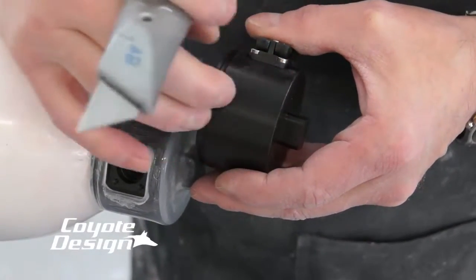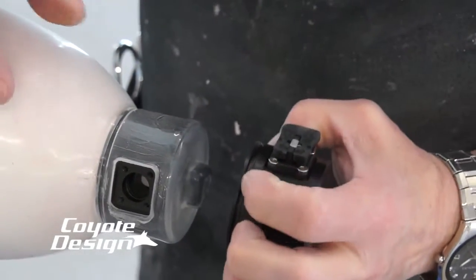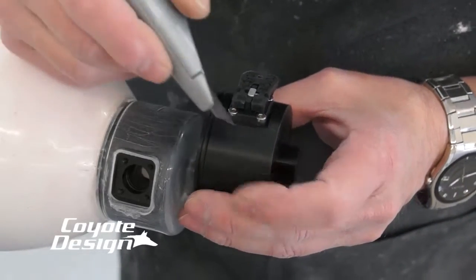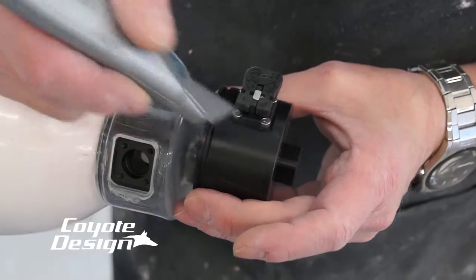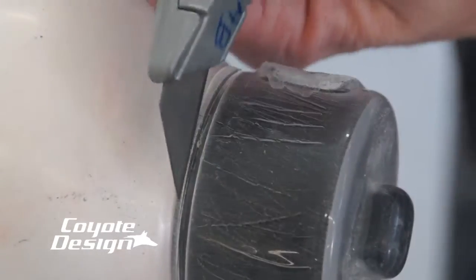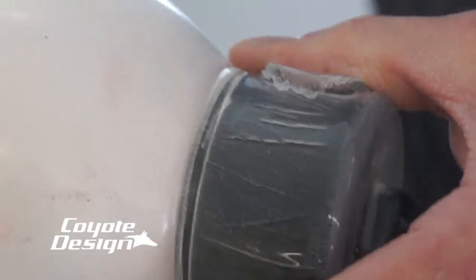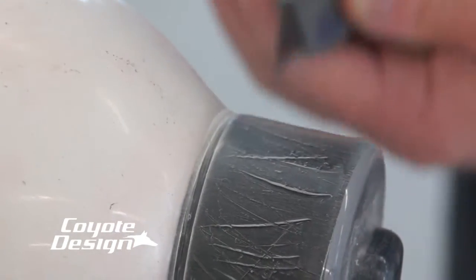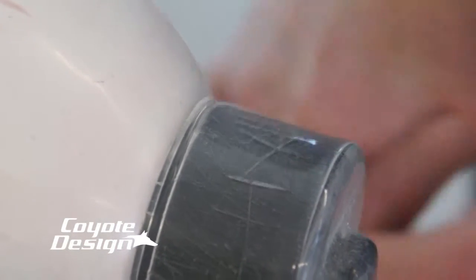This is part of the reason why we've got away from leaving it smooth like this. So when we do laminate, and the body of this plastic is really scored and roughed up, that epoxy resin will bond to that a lot better, and you'll get less to no air flow down through the body of this and then back out the side. The utility knife won't make it through and into our plastic and hurt our lock — it'll just put a score line in that groove, and there's nothing wrong with that.